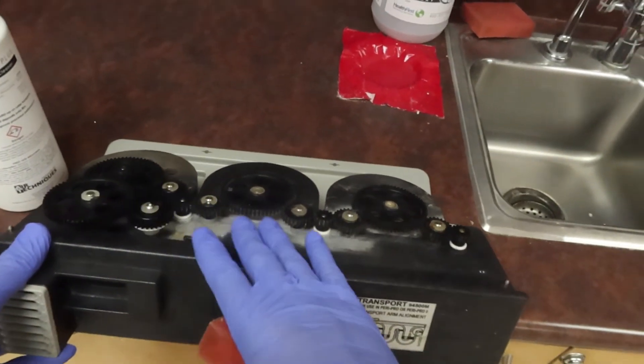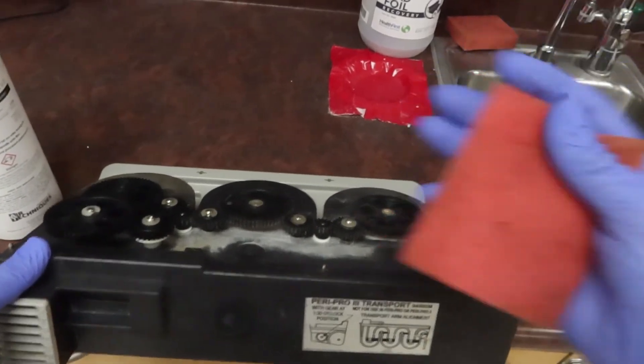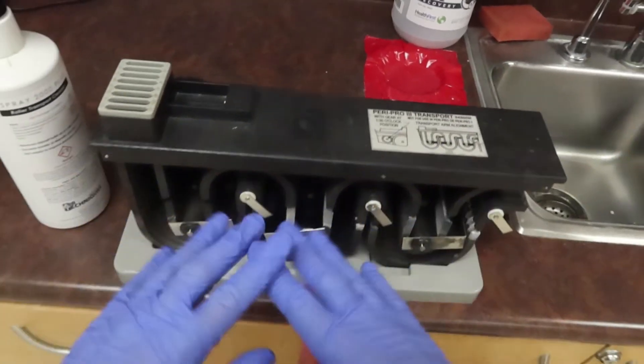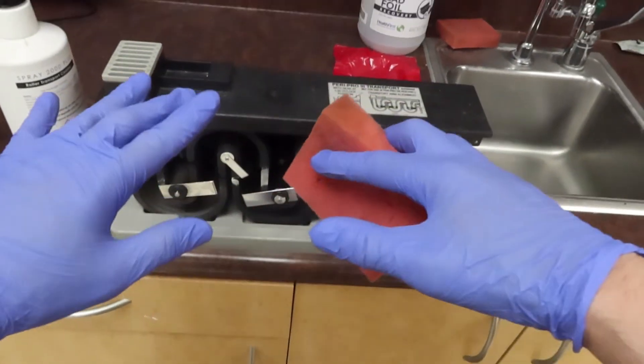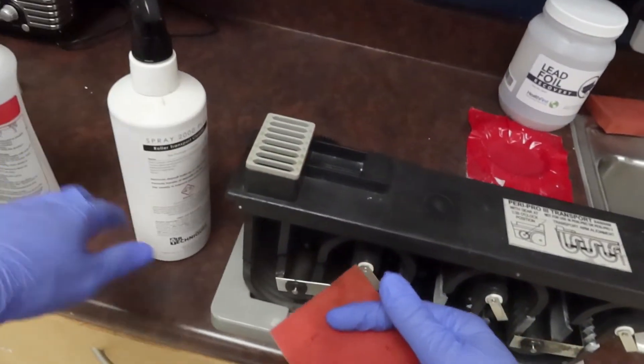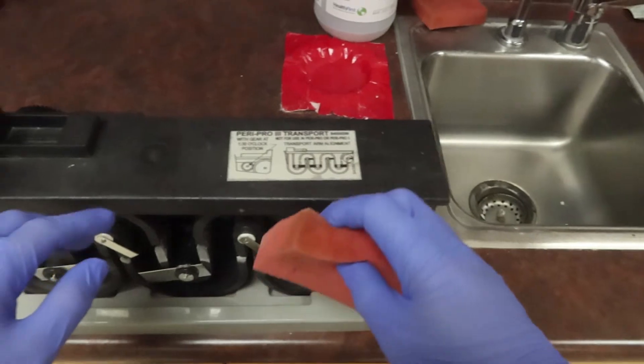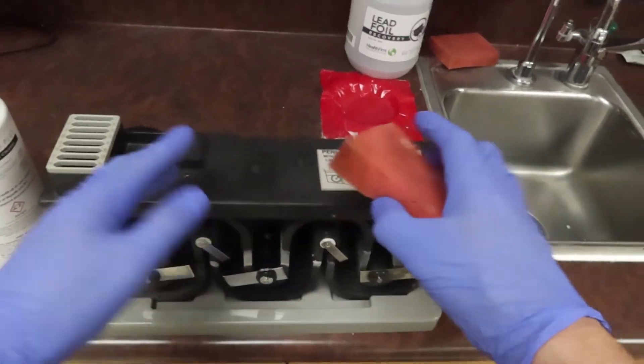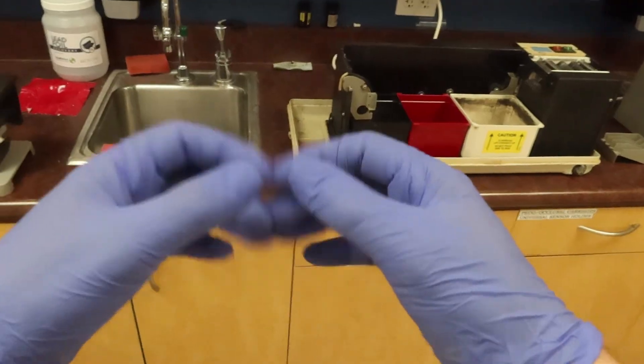Be careful with these gears. Once a gear loses a tooth, just like we do here, it's going to be a bad time. Keep in mind when you are cleaning this to be gentle, rinse it really good, and make sure you're using the proper cleaners. Do not use bleach at all. Once it's nice and dried, we can start working on re-putting it back together.